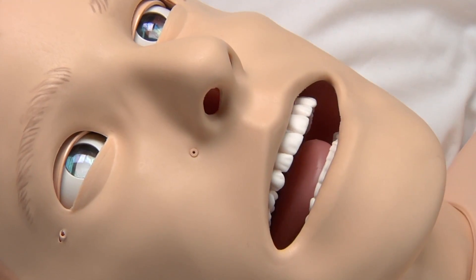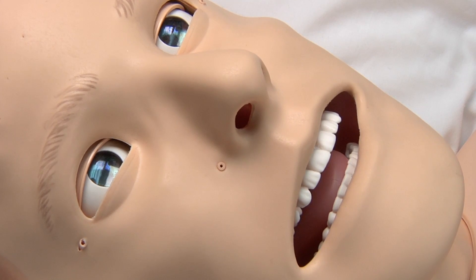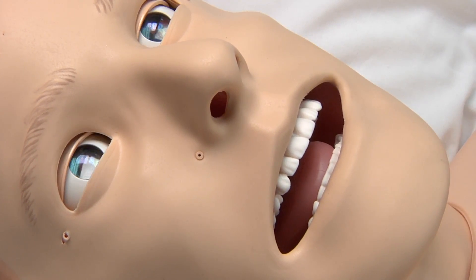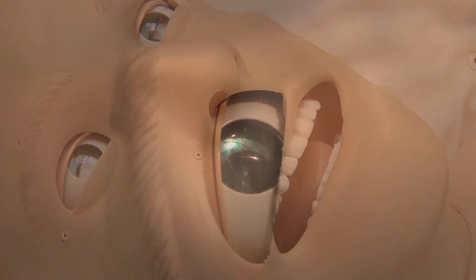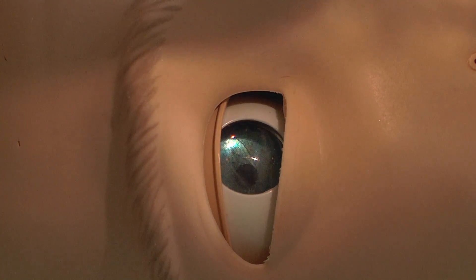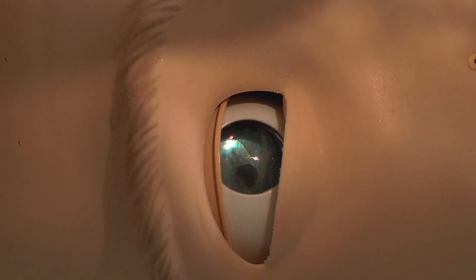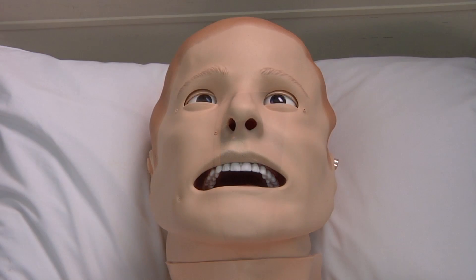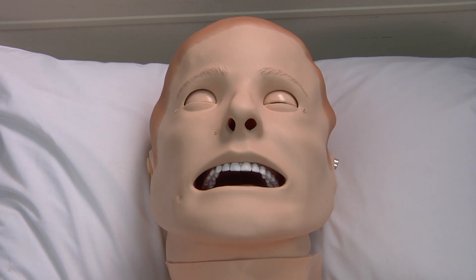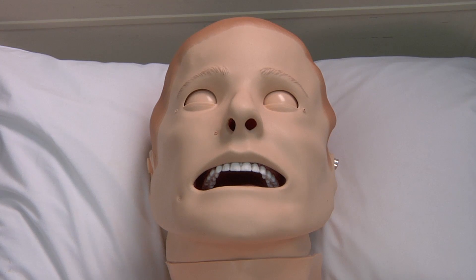Using SimMan 3G's advanced technology, medical professionals can perform neurological assessments using SimMan's light-reactive pupils, which can be set to normal, dilated, or constricted. His eyelids can be set to blink at different rates in positions of open, partial open, and closed.